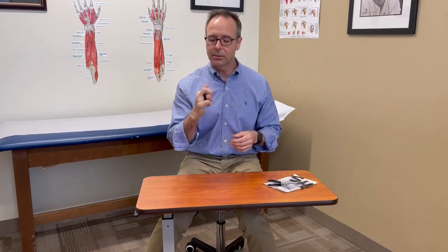Here's an RMO hook splint I just put together, and this is how we would normally use it to keep the middle finger in relative extension. For example, I had a patient the other day with a locked trigger finger for months who didn't come in for treatment. We released the trigger finger and she's just coming up partway, so her MCP is tight in flexion, which would make us want to put the finger in relative extension to work on the MCP joint.